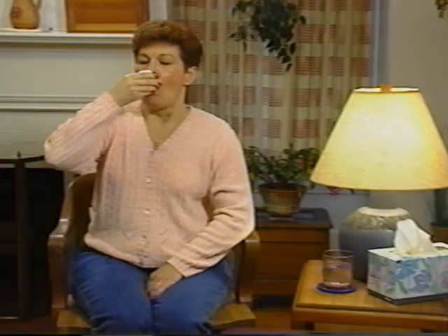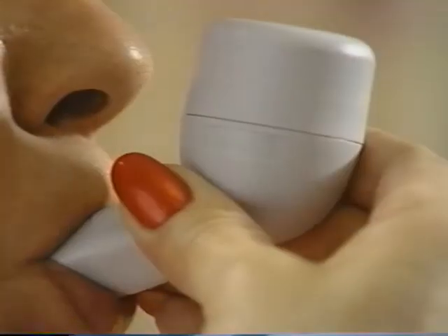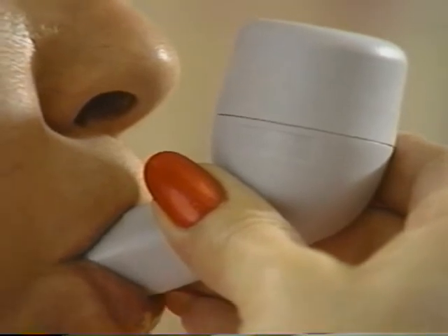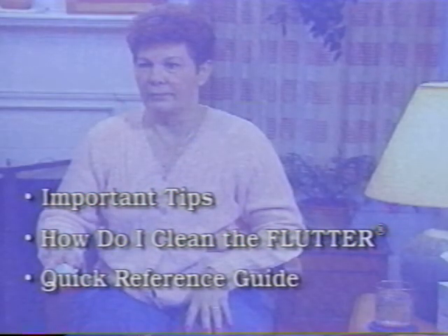Remember, the primary goal of airway clearance therapy is to comfortably and efficiently remove as much mucus as possible. The flutter will assist you in achieving this goal. Refer to your patient instruction manual for complete usage information. Read the Important Tips section for additional ideas on how to ensure successful flutter therapy. Review How Do I Clean the Flutter? Because with proper care, the flutter will provide years of beneficial use. Finally, the Patient Instruction Manual contains a quick reference guide to detach and carry with you.